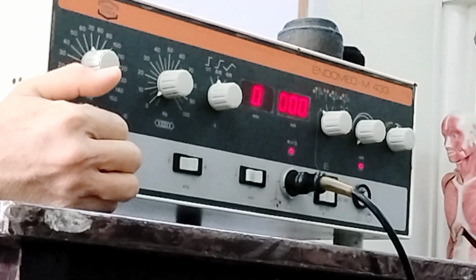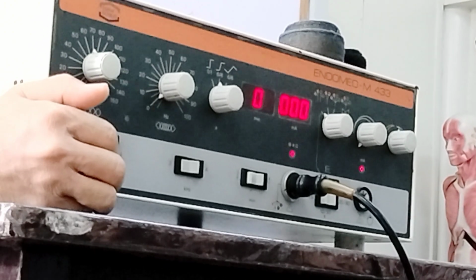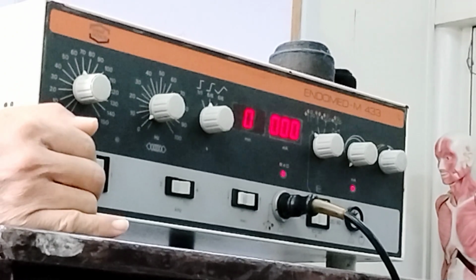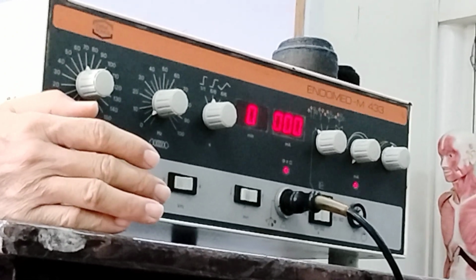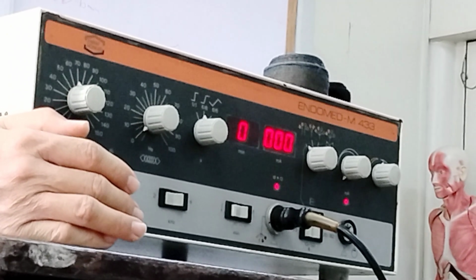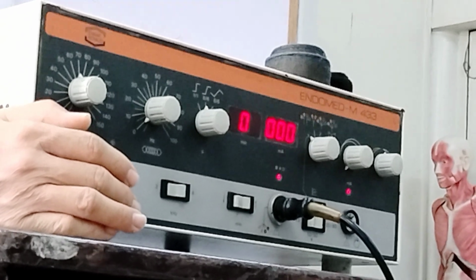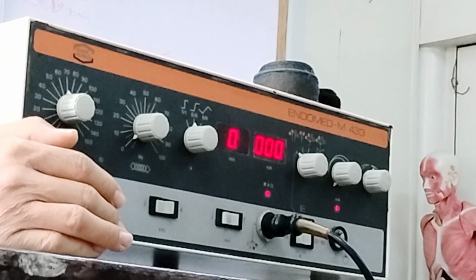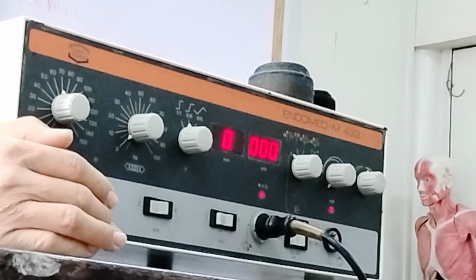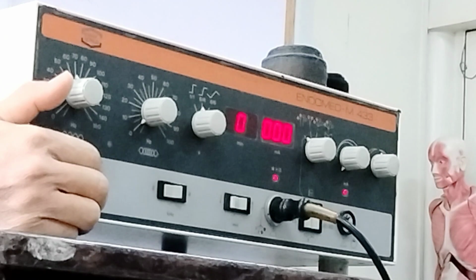Another way of selecting the value here is based on the stage of lesion. What are the stages of lesion that you have learned? You have acute, subacute, or chronic. With regards to the stage of lesion, usually in acute conditions, since it has just happened, it is really painful on the part of the patient. Therefore, if we're going to provide a stimulus there, we have to provide a less aggressive one.